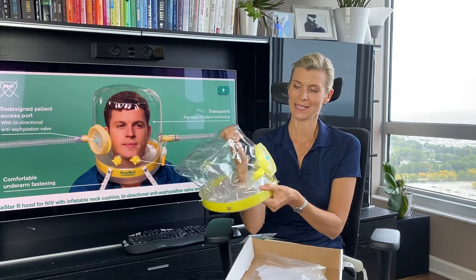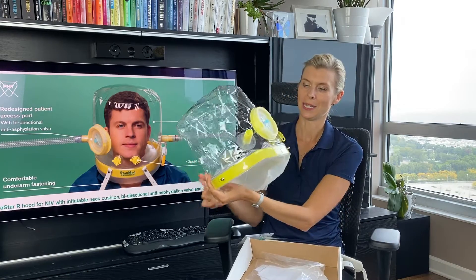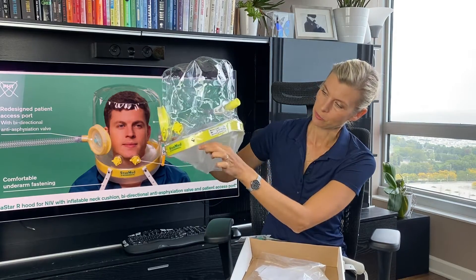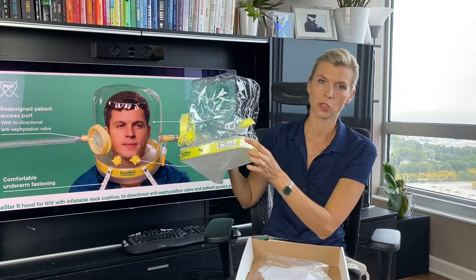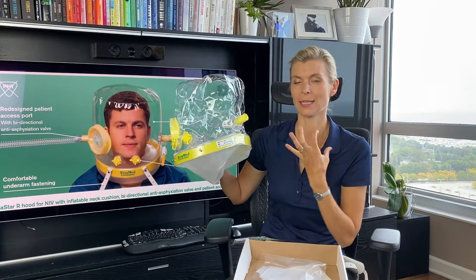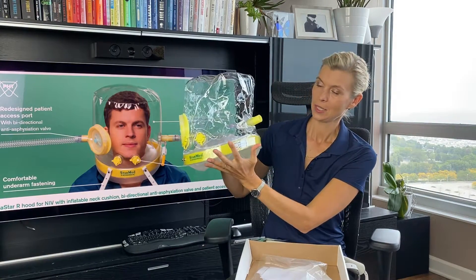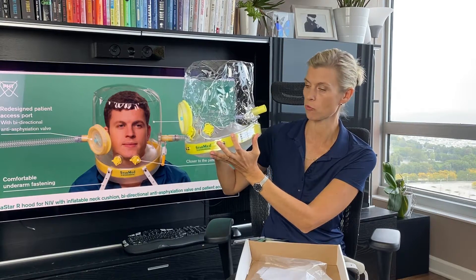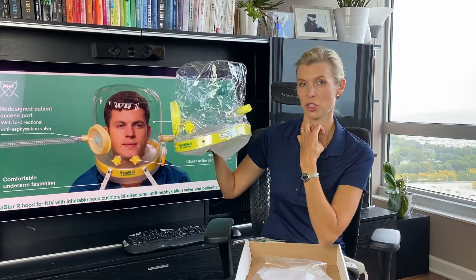The helmet itself is a one-piece and it has a hard ring. The ring has a nice curve on the side. The reason for that curve is not just for comfort, but mostly to prevent any leak that can happen in the front of the helmet. When the pressure increases, it can raise the helmet up — this is when you have to adjust your underarm straps. But this curve will make that seal much better.